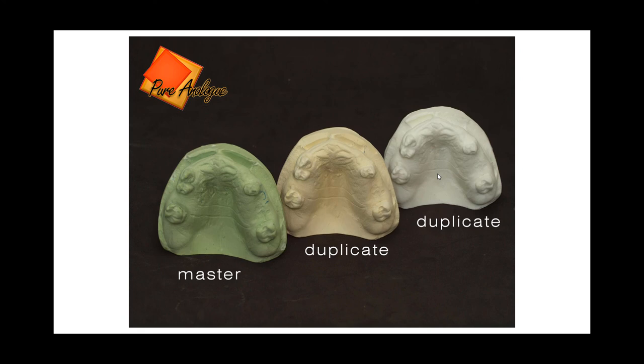So I wanted to show you today that for a very little amount of money, with a little bit of technique and creative thinking, you can come up with solutions to everyday problems in our laboratory without having to make a large investment. My motto lately is purely analog, because I believe that what it would cost to duplicate models with digital far outweighs what I could do with this, and the cost associations are so little that I can duplicate at will.